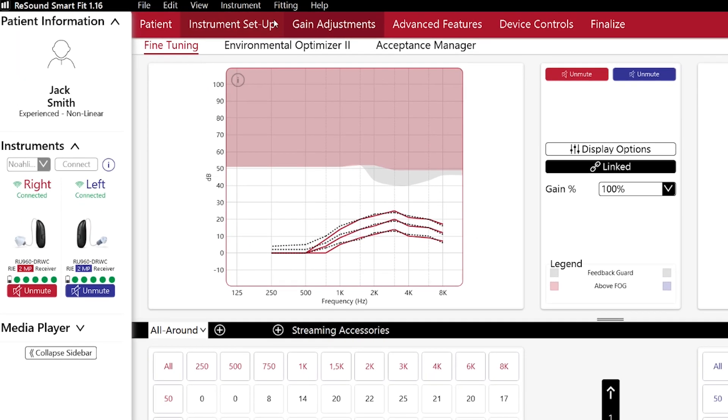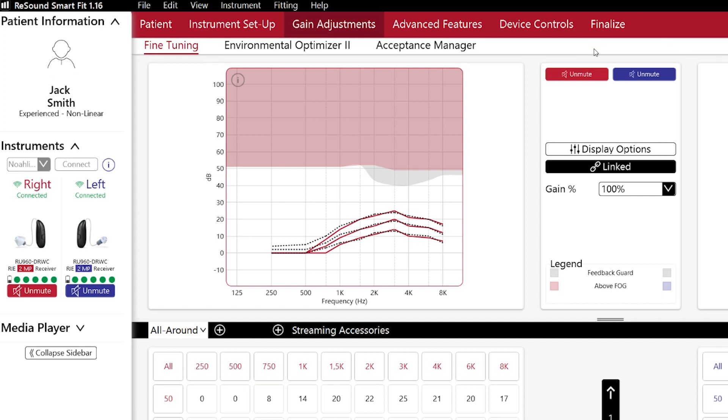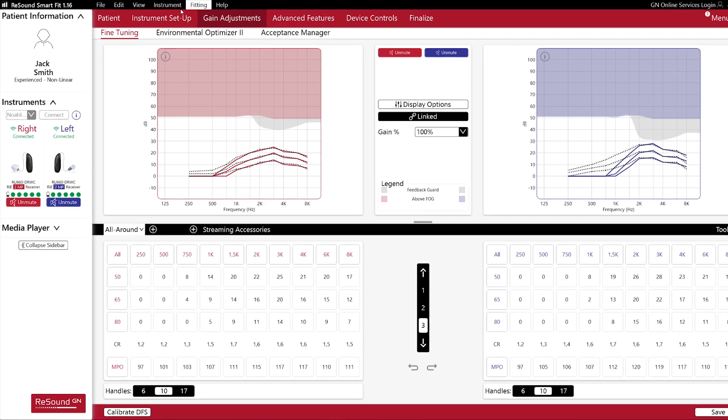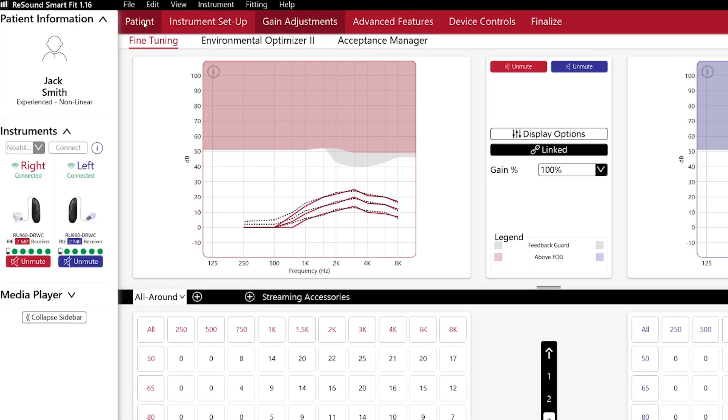Next we have the main navigation menu. Here you have all the steps, part of your fitting process, arranged in a logical order from start to finish. Do you have to go through all these steps? No, of course not. You are free to move through the software and change only those settings that are relevant for your patient. In this video I want to show you the ones that I find most relevant during a first fit.